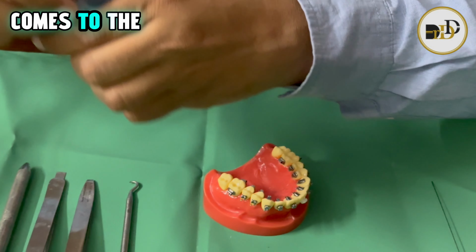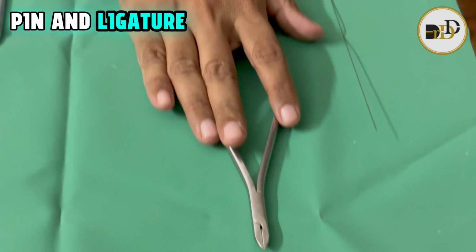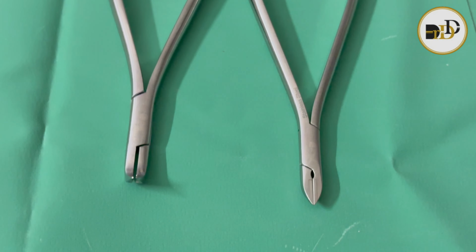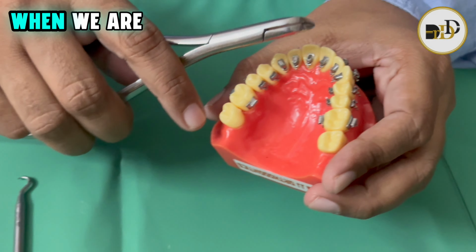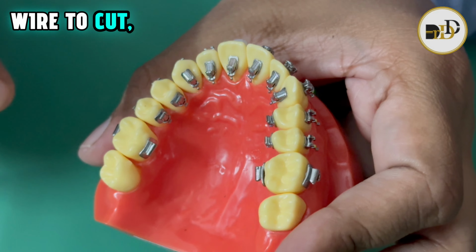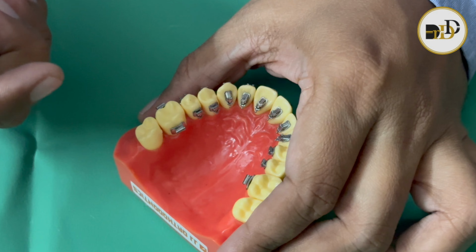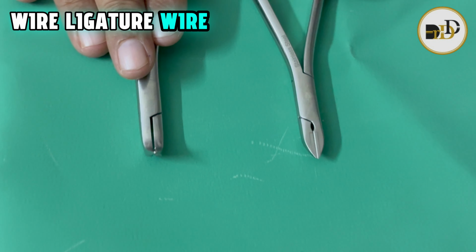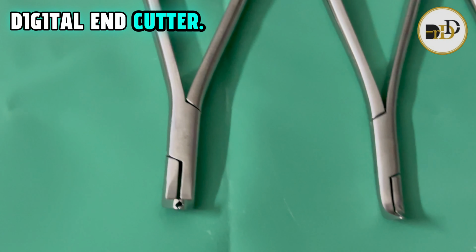Now, when it comes to the lingual instruments, this is the pin and ligature cutter. This is the straight one and this is the curved one. Especially when we are working on the anteriors, making ligation, and after that we want to cut any of the wire, we need to have the curved head so that it becomes easy to do the work. So these two are the basic pin and ligature wire cutters.